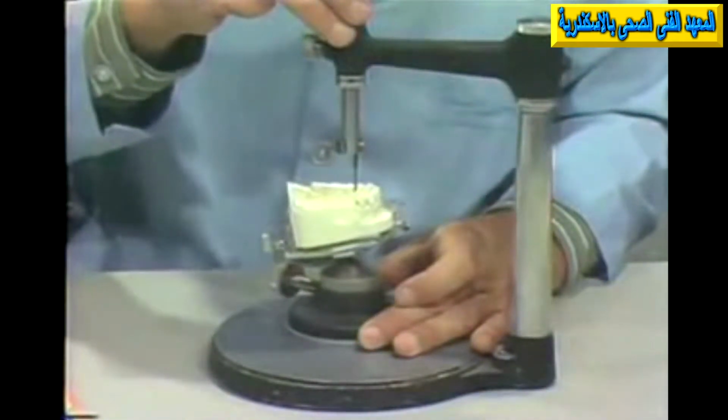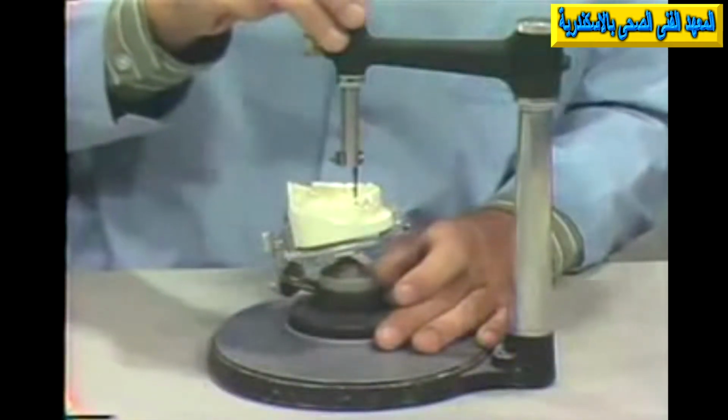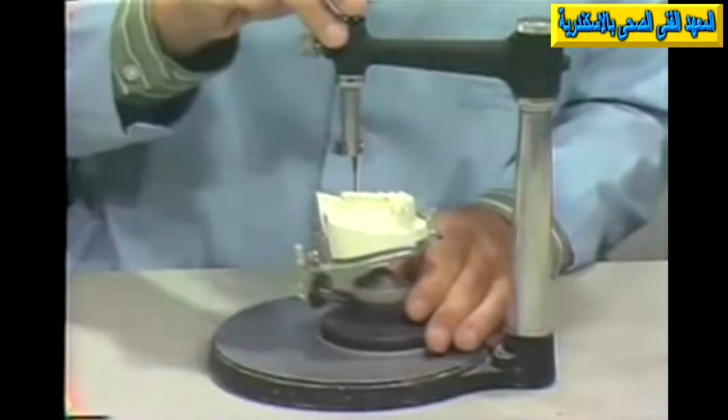Now, as this would seat to place and the arm perhaps is the reciprocal component, it would slide to place, touching the tooth here. And then, do we have a parallel plane which would allow us to slide to place? Notice that the arm is sliding along a parallel plane. And this reciprocal arm, as we mentioned before in the component parts lecture, could engage the tooth along this flat plane, thereby bracing it or supporting it against orthodontic movement due to the fact that on the opposite side, our retentive arm here would create a little pressure on this tooth and perhaps cause movement due to the fact that we have flexure of the retentive arm in crossing over this. So again, in terms of this particular tooth, this factor of guiding plane and also a reciprocal plane here would be quite satisfactory. Now, we'd have to check the tooth on the opposite side, this molar.